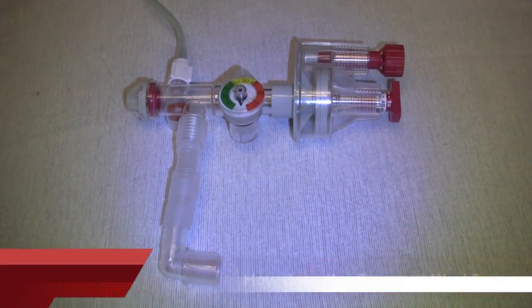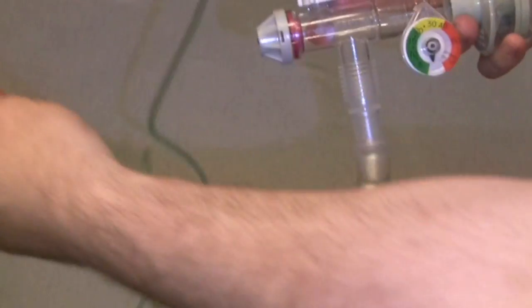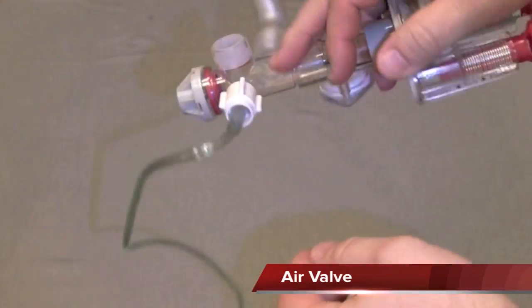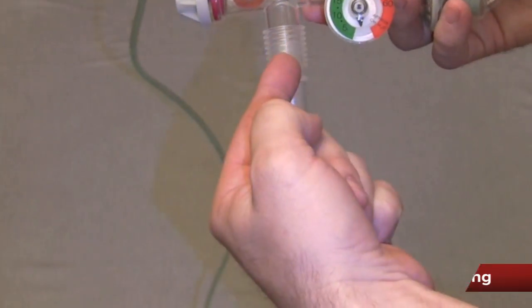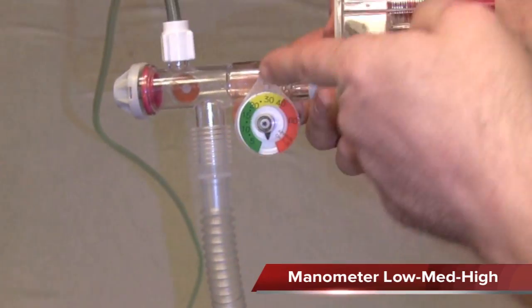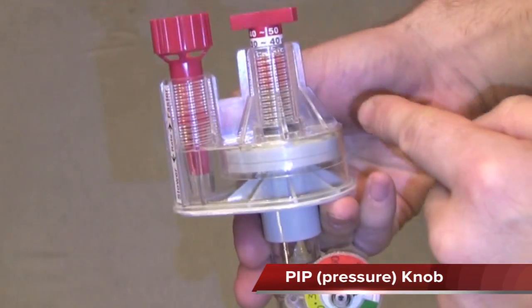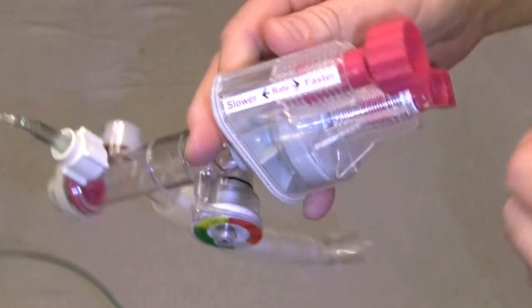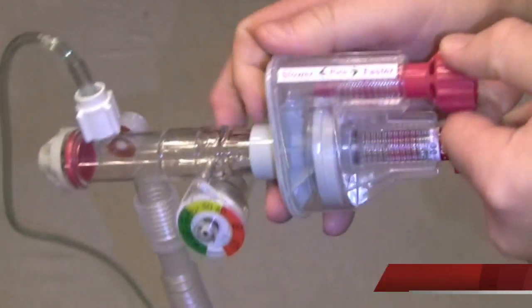So how does the Surevent work? Here you have the screw-on connector and oxygen tubing. On the back side you have the air valve. You have the pop-off pressure relief valve, patient connector tubing. We have the manometer in low, medium, and high indications. We've got the PIP, or peak inspiratory pressure knob, that controls effectively the volume. And we have the rate knob with simple slower and faster settings.